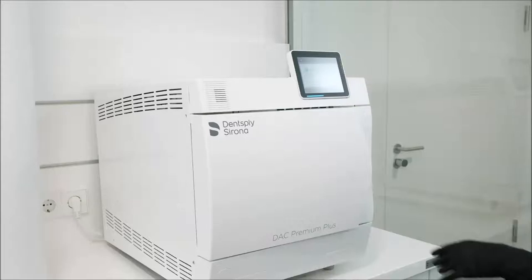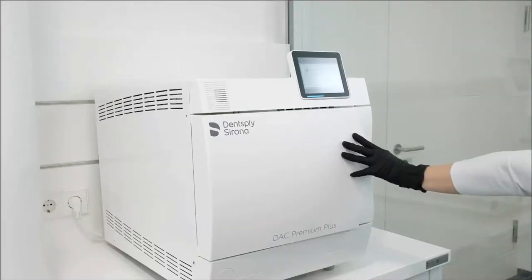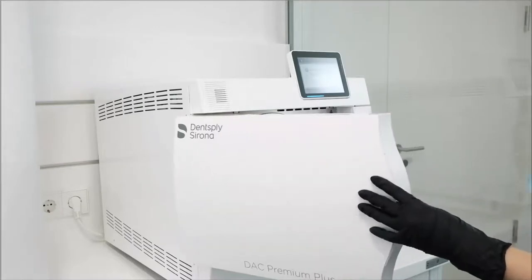In this example, we are using DAC Premium Plus, a Class B steam sterilizer. After sterilization, store the sleeve in a location that is free of contamination.